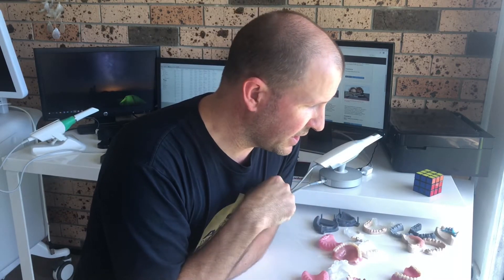As for the tissue around the sulcus — you'd be doing an intraoral scan on an edentulous area, then going to a tray. If you've ever tried fitting a digital tray before, they have awesome suction and you get really good impressions. Labs that are doing these trays are saying they're getting much better impressions back from the dentist. It's a good way to go digital, albeit in an analog kind of way.